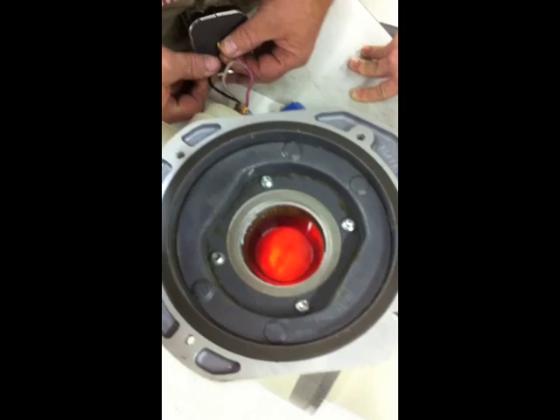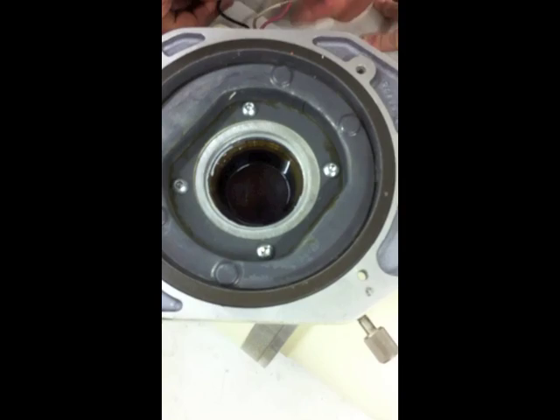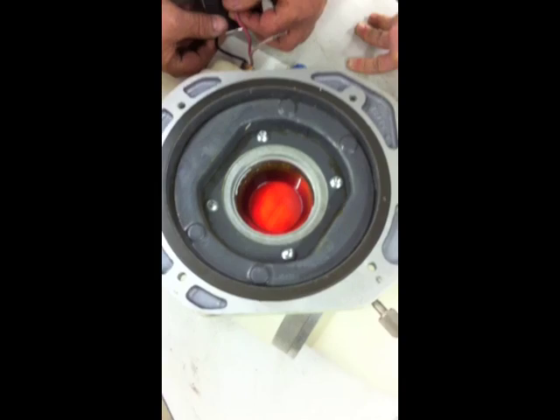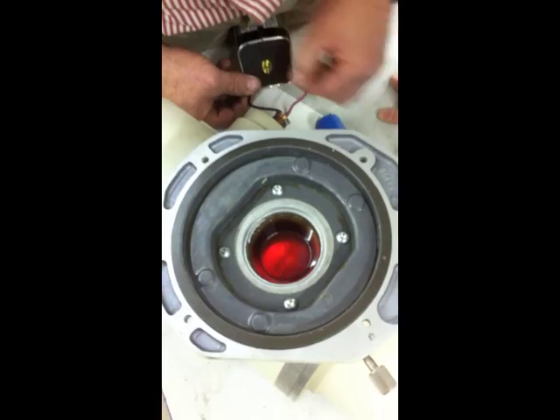So those three wires are for... you've got a common, the large, and the small. So which wires? Notice this one's on this side. You see the white spot — is that the large or the small filament on that side? We're going to find out. See that one's always shifted over the other way. That should be the small one — it's dimmer. They usually have more resistance.